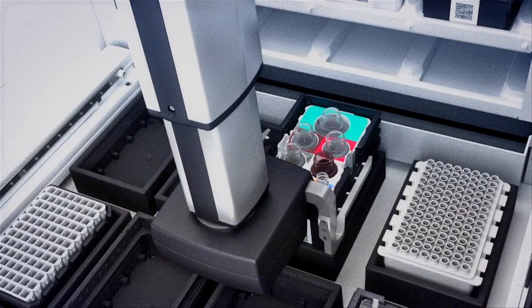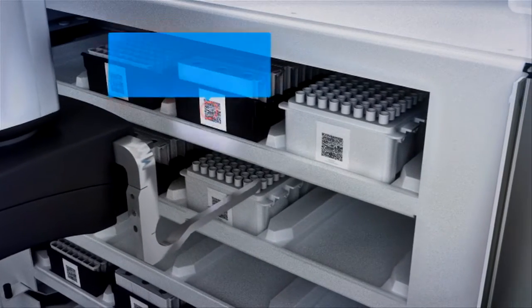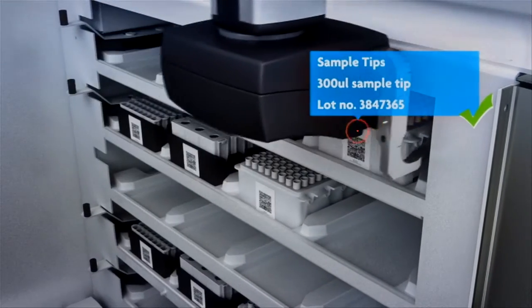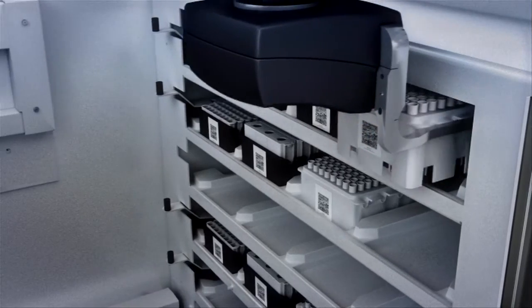The system records when consumables are loaded and tracks usage. An inventory check is applied before initiating the work list, so the user can walk away with complete confidence.